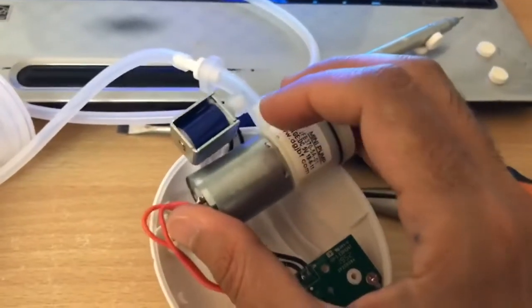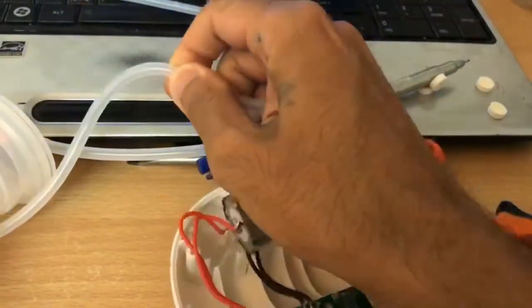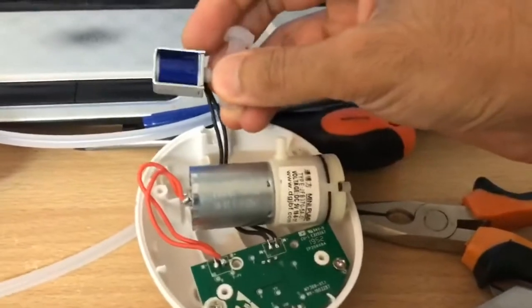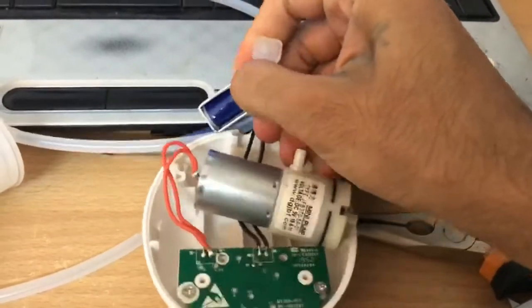The motor was working, this one was working, this one was working. The problem was the joint — specifically this joint here where the release valve is attached.